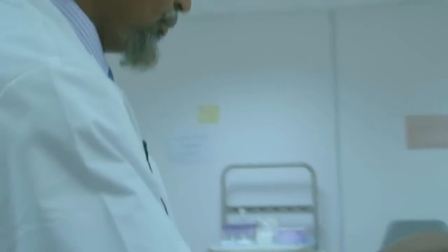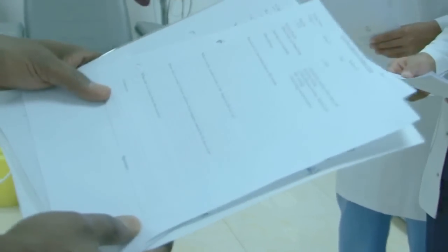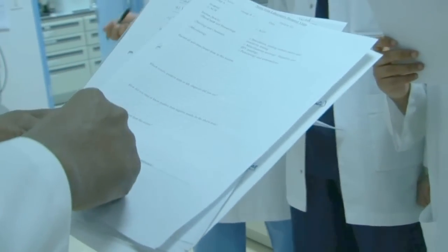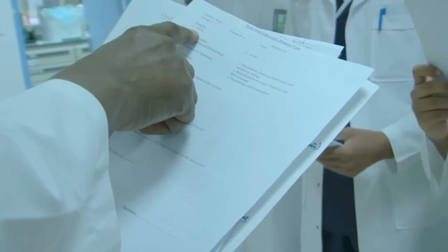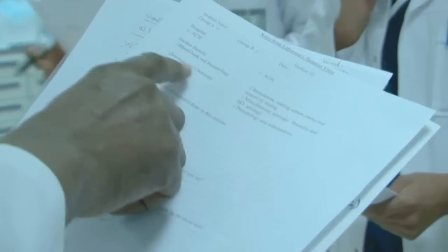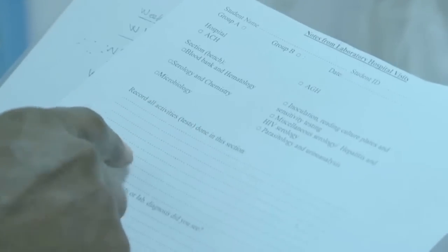For this course, we are dealing with this section of blood bank, and we have this form, and this form should be filled by the student, and you write your name and your ID, the date of inspection or being trained here in this section, and this is Asir Central Hospital, and this is Abha General Hospital, and the different section here is blood bank, serology, and microbiology. You tick on the suitable place, and then you list the activities. So let us start by listing the activities of this section.